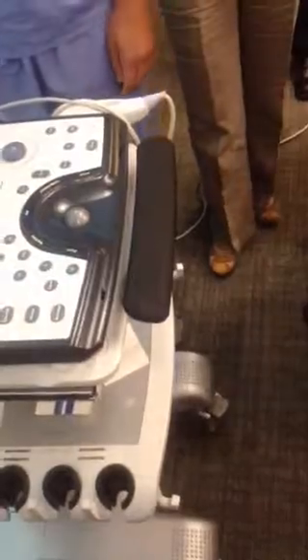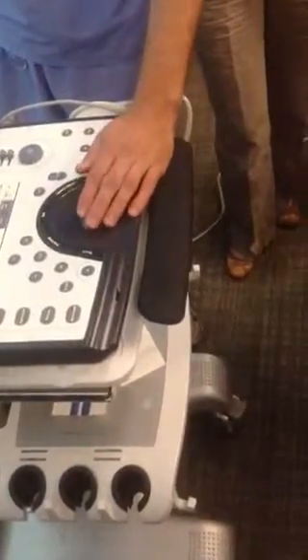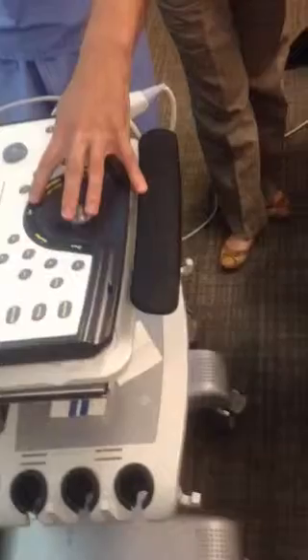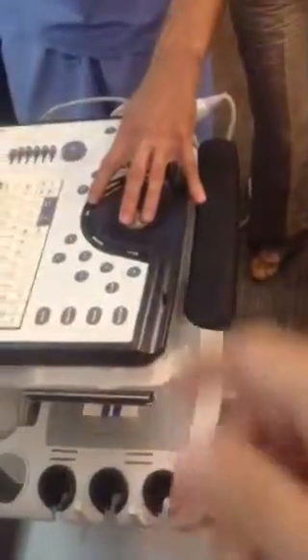We've got the machine on. We've created a patient. There's a list down here that gives us several different options, and I'm going to drop down here. If you want to film that. Yeah, he's not. Okay, he can film this though. Are you not filming? I'm filming your hand right now. Okay, no, film this part right here.